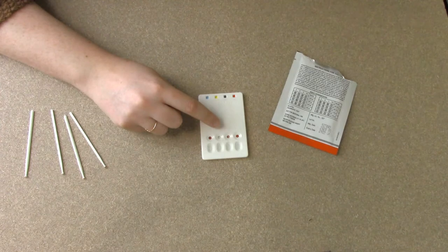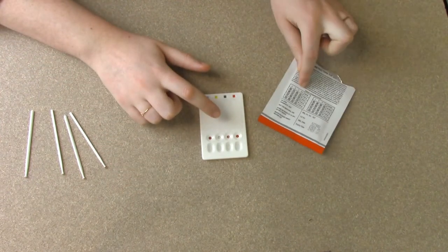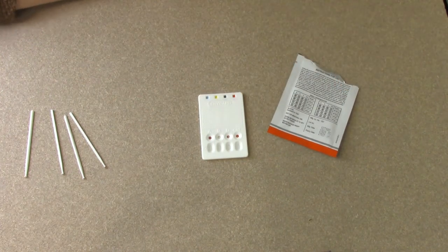And in just a couple minutes, I'm going to be able to tell exactly what blood type I have using this card here. I can read what my results are. So we'll give that just a couple minutes and watch what happens.